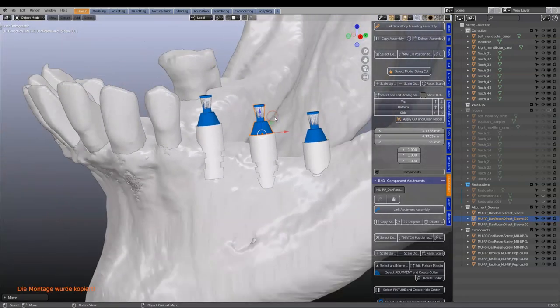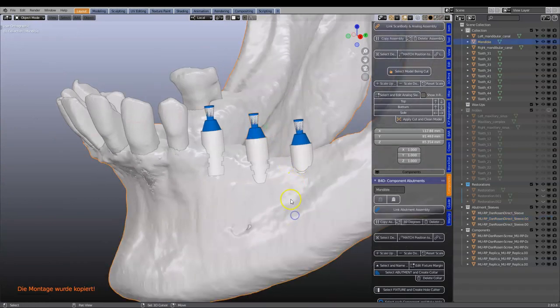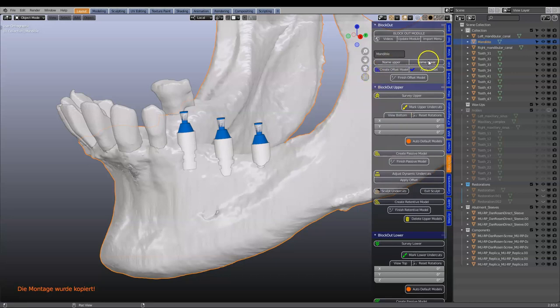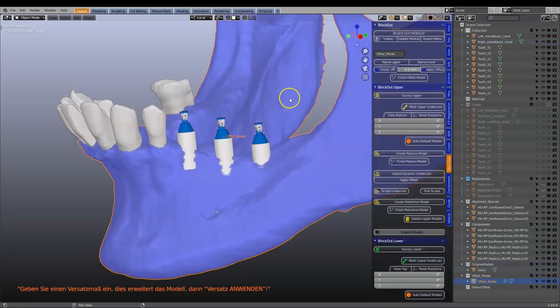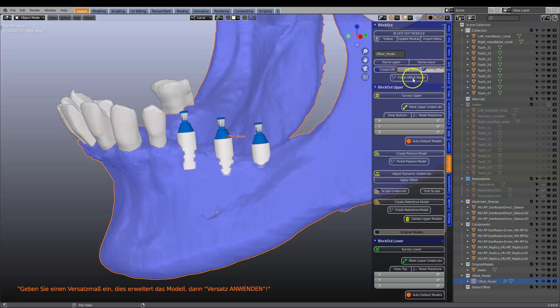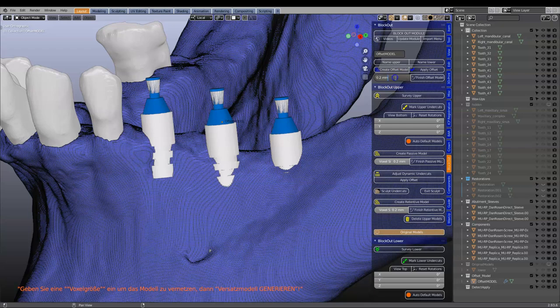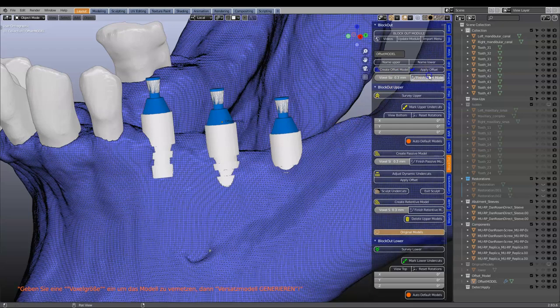Then I'm going to take the mandible and go into the block out module. We're going to create an offset model which is 0.2 — you can put this any thickness you want — and then remesh this model. We don't need such a fine mesh; it'll just slow things down. I'll set that to 0.3 and finish the offset model.